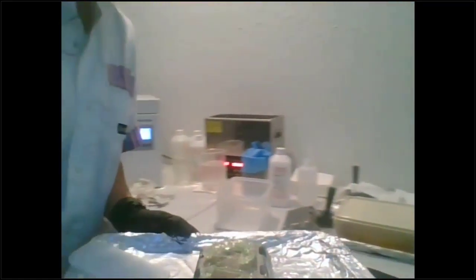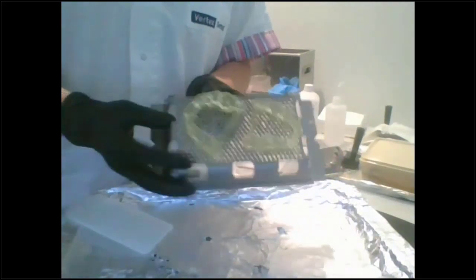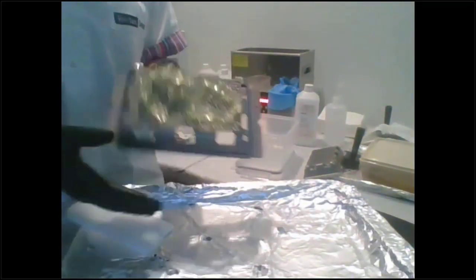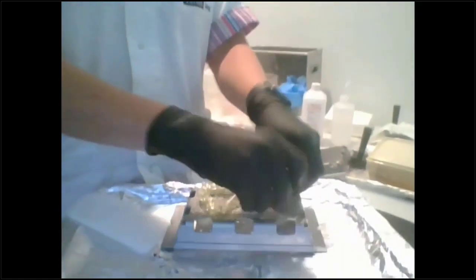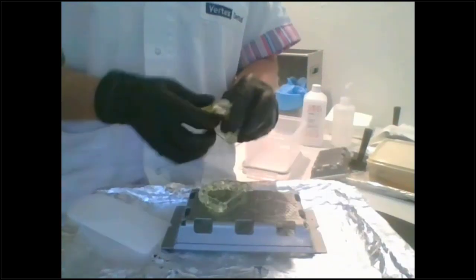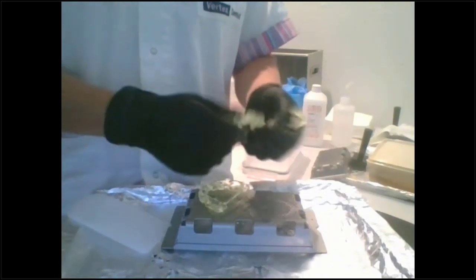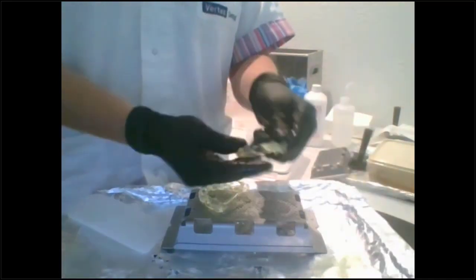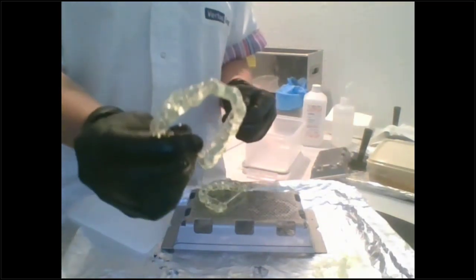Okay, so back to the surgical guides. So what you're gonna do here is, now these aren't fragile at all, right? If I was doing veneers, I would actually punch them from the bottom, but that's about the only thing I would do that for. So all you have to do is just pull them off of the tray, and then you just rub off the supports, okay? See?